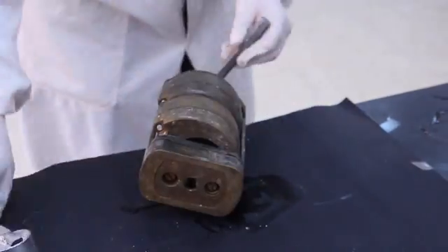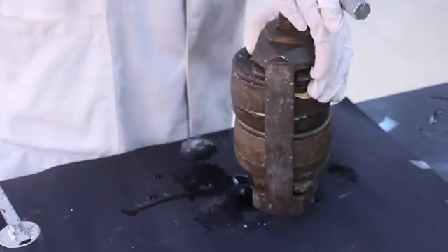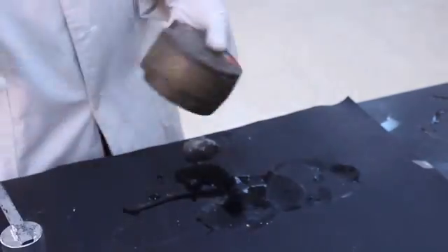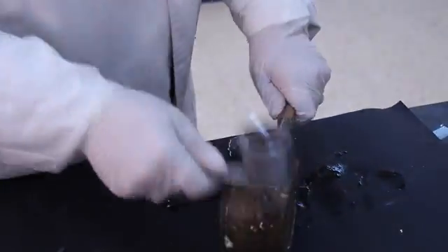The recovery of the prosthesis from the denture flask requires thought and patience. The stone mold is first removed from the flask itself, and in turn, the layers of investment are carefully removed.